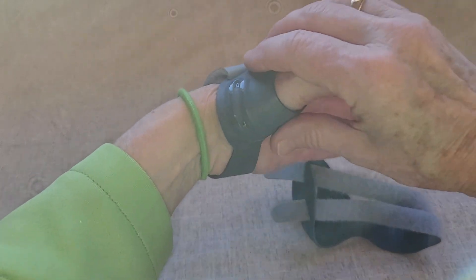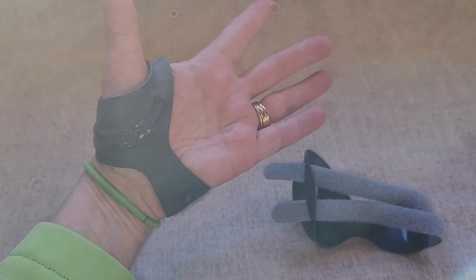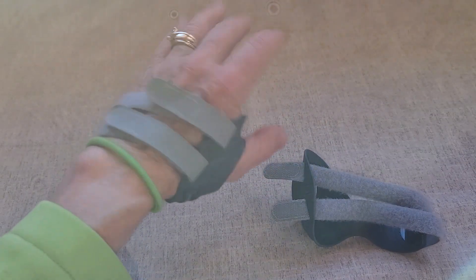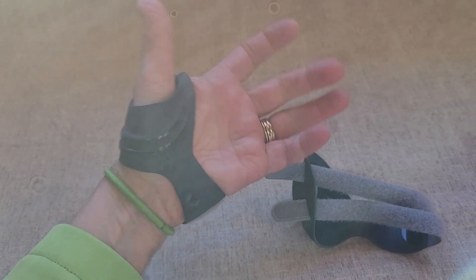And the fact that it is adjustable so I can just squeeze it in there to make it a little bit snugger. It goes on easily. It's not overly hot to wear, and the material seems to be fairly durable too.